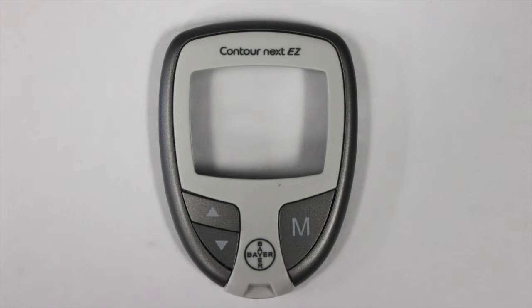The front casing of the glucometer is also injection-molded plastic with a plastic screen that protects the LCD screen. The front casing contains branding information and the device name. It also contains three buttons that are the primary form of user input. The two arrow buttons scroll up and down through options, and the M button turns the device on and off and scrolls through history and other options.